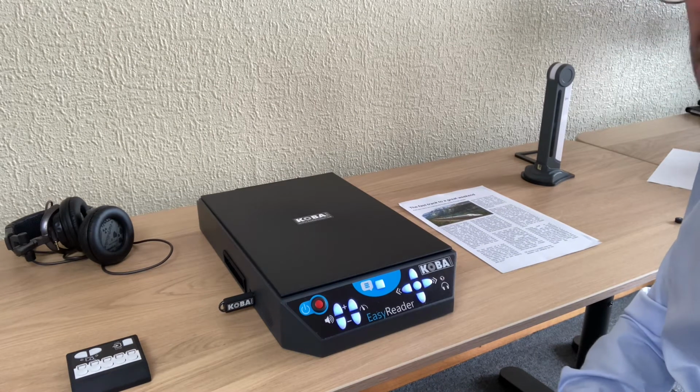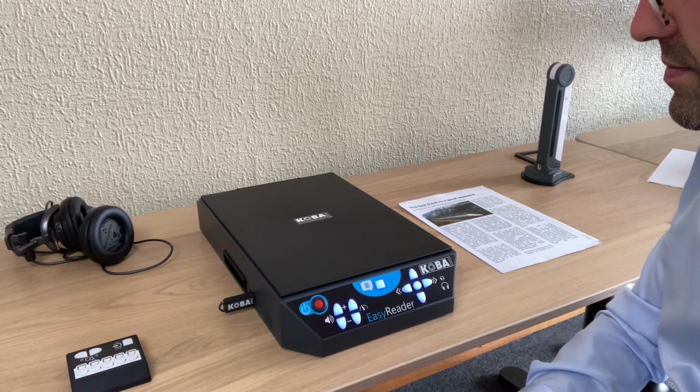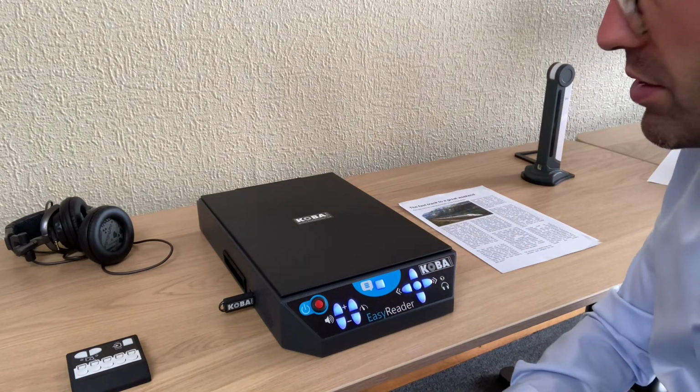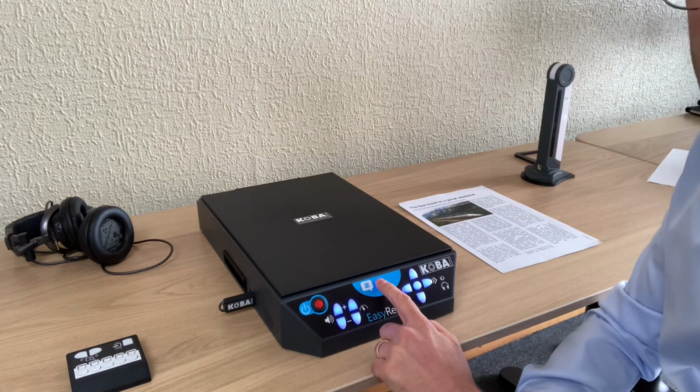Now you have to wait until it knows what to do with the USB stick connected. "Press the scan button to save all 4 pages on this USB stick. Press another button to open PDF files." So it explains to me that I have to press the scanning button to save all the pages to the USB stick. So this is a scanning button.